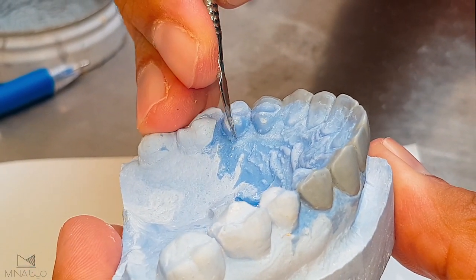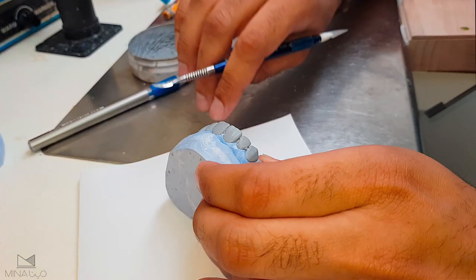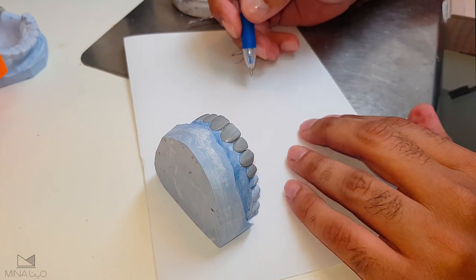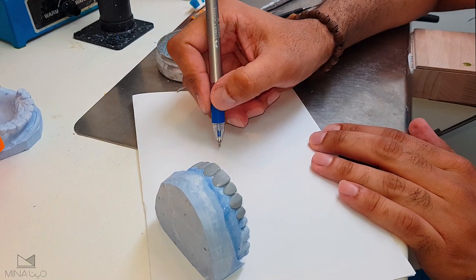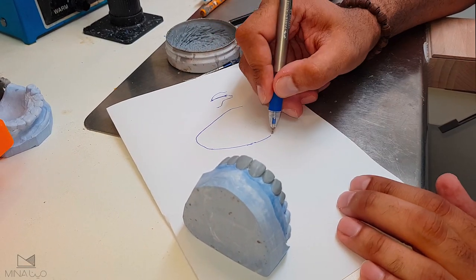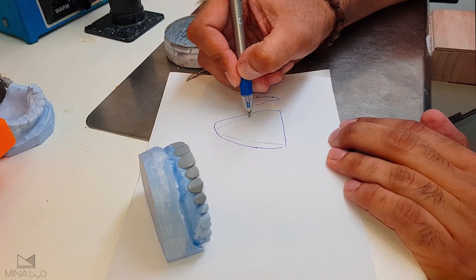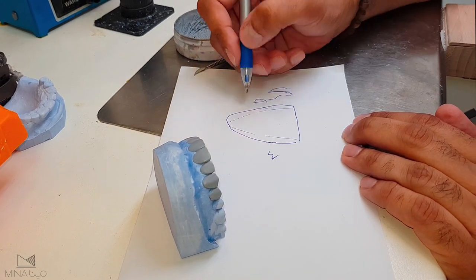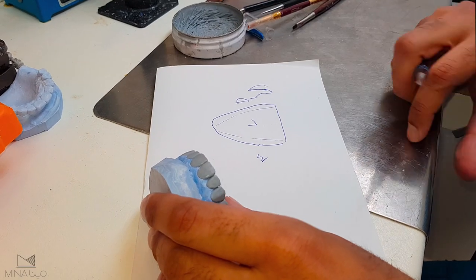This is a case of a veneer, so we're only doing the facial part, not the lingual part. Now the second anatomical feature is the line angle. A line angle is basically the joint between two surfaces. On a labial surface — let's say the central — you have two line angles: one connecting the mesial and the labial surface, and one connecting the distal and the labial surface.